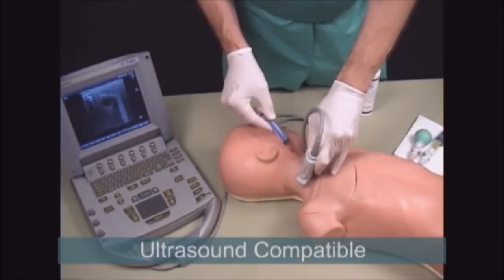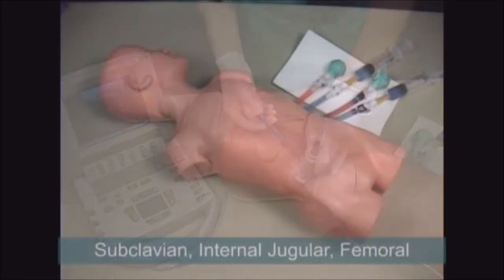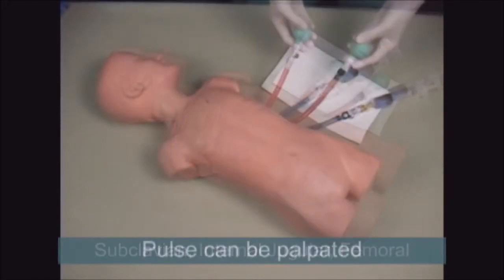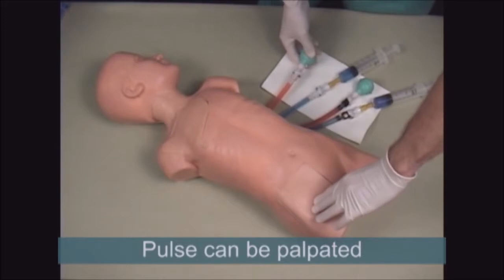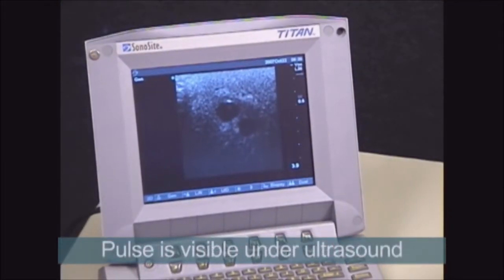This simulated 5-year-old is ultrasound compatible and has 3 access points: subclavian, internal jugular, and femoral. VascularAccesChild also includes 2 arterial pulse bulbs, which provide excellent simulations of the arterial pulse when palpated, and also when the pulsating artery is viewed under ultrasound.